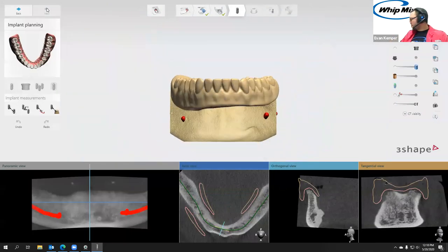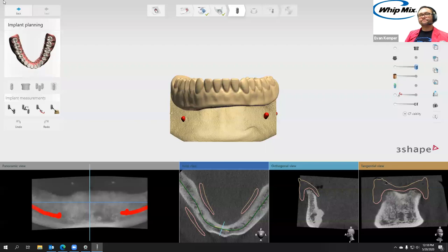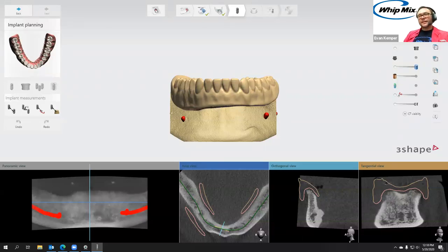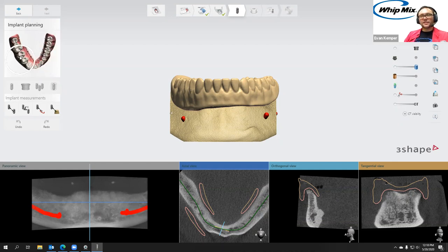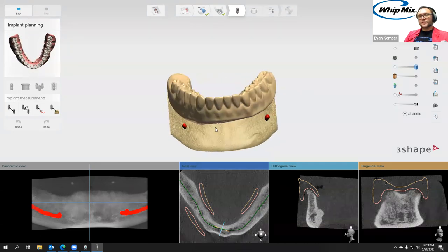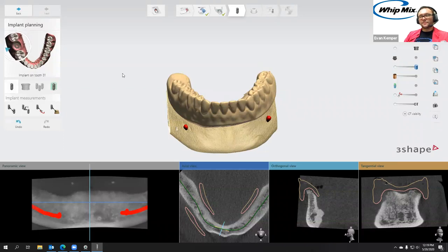Once we have the nerve map we go next, and that gets us to the planning stage. On Monday we just had a plus underneath the one tooth identified in the order form. Now we can hover over any of these teeth and have a plus, so we can basically add an implant wherever we want. I'm just going to pick one to start with — let's say the second molar. So I'm going to click that.